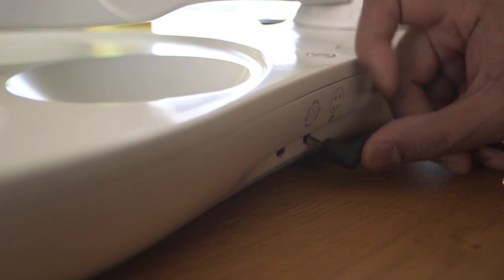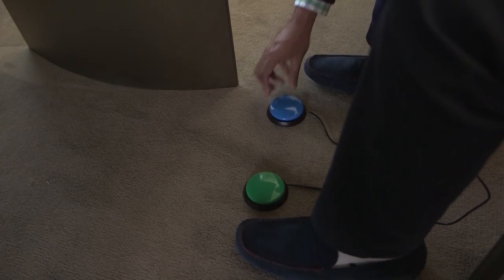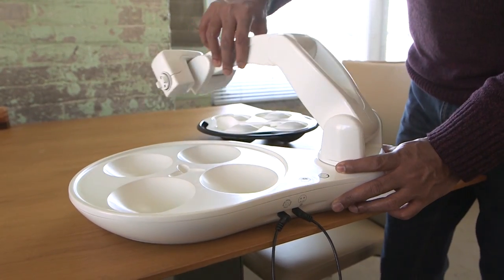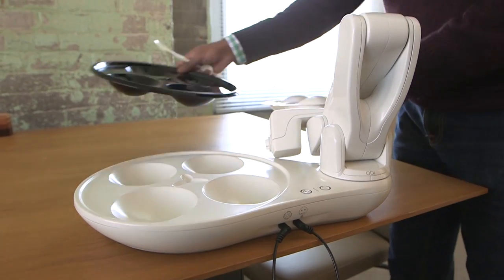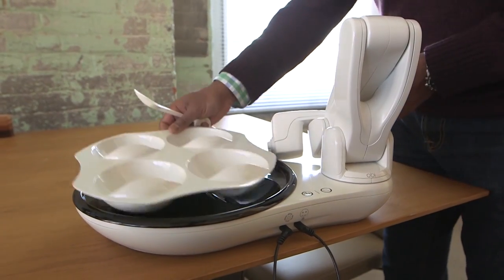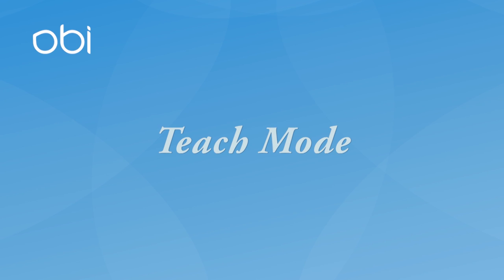Insert the activation switches for the user and place them within the most accommodating region. Next, move the arm to an appropriate position, insert the placemat in the right orientation, place the plate with food in it, and then attach a spoon.